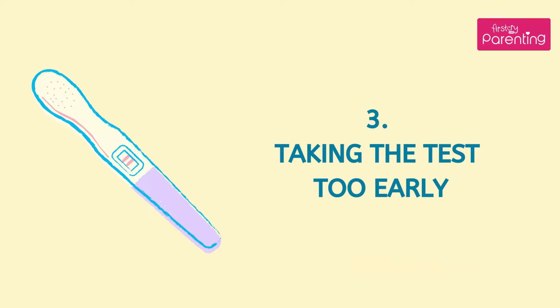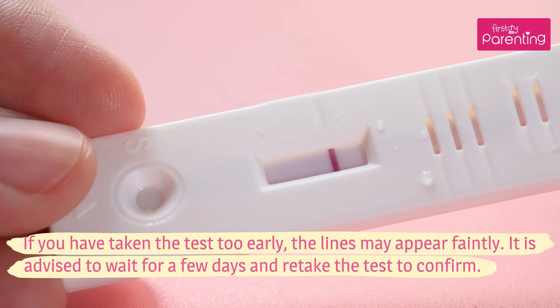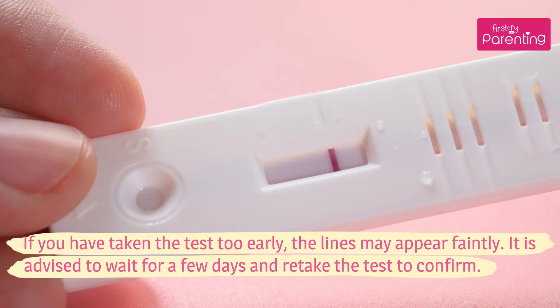Number 3: Taking the test too early. If you have taken the test too early, the lines may appear faintly. It is advised to wait a few days and retake the test to confirm.